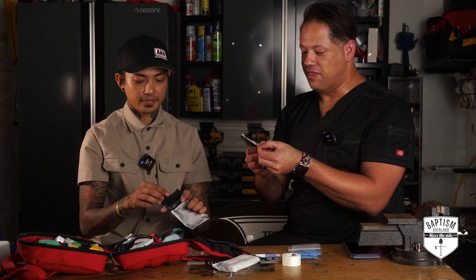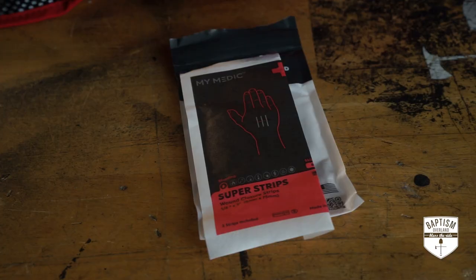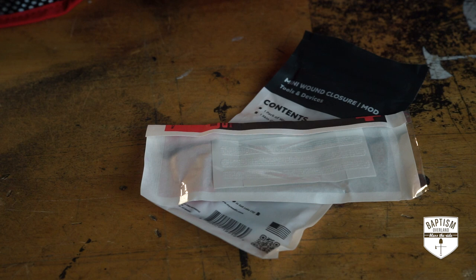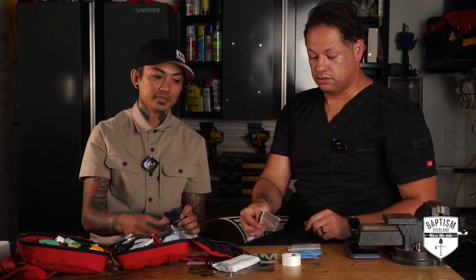Super strips — these will actually close wounds that are much larger than the mini wound kit addresses. The adhesive is usually for small wounds; it's not going to keep your skin closed if it's gushing. The super strips are the medical-grade version of a butterfly closure. They create tension on wounds so they can close them. This is actually medical grade — that's a plus. MyMedic is doing well so far.